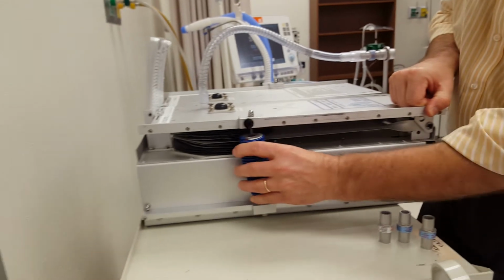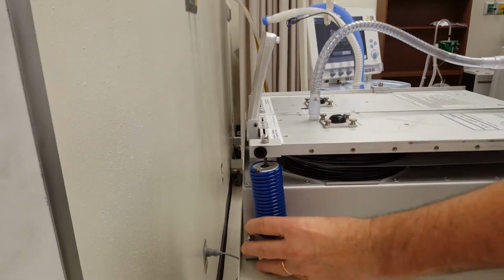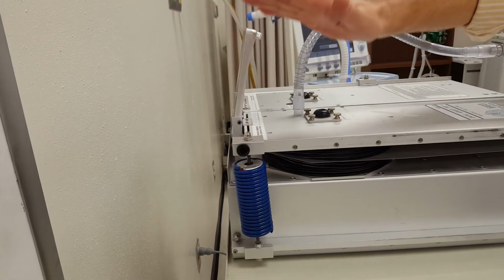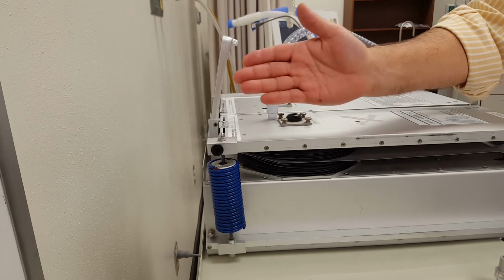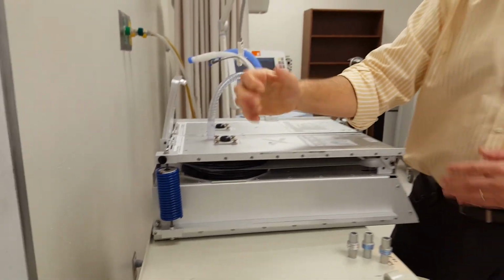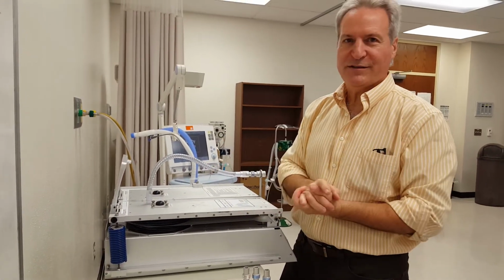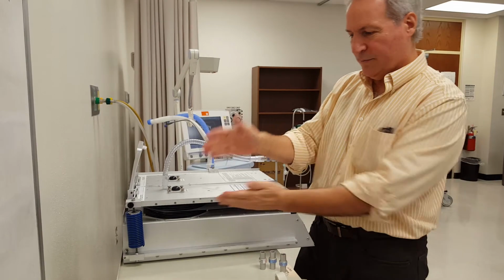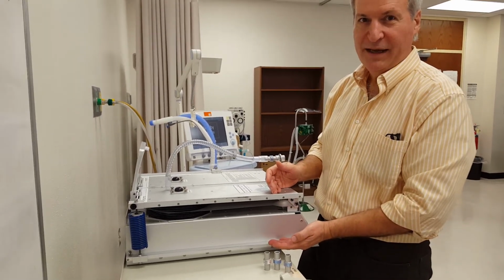Now look at how fat that spring is. If we put this spring way down here at the end and then try and lift up that end of the lung simulator, it is going to be very difficult to stretch this tightly coiled spring. So that simulates very low compliance, where we only get 10 mils per centimeter water pressure compared to down here where we get 150 mils per centimeter water pressure.